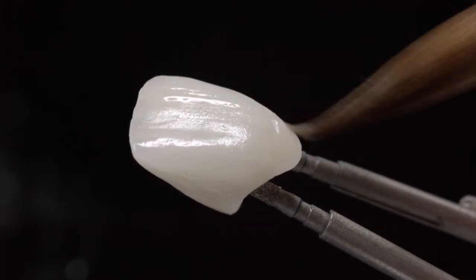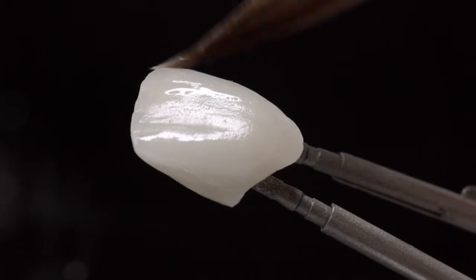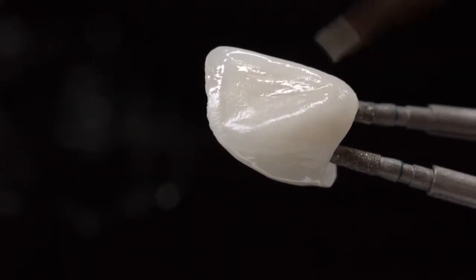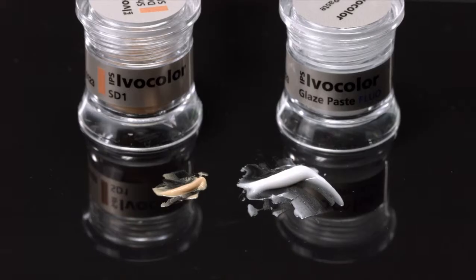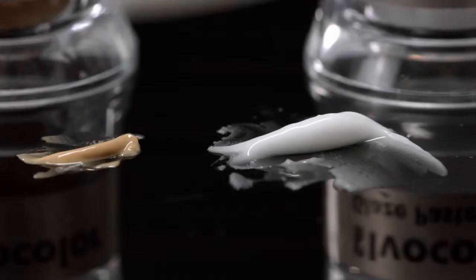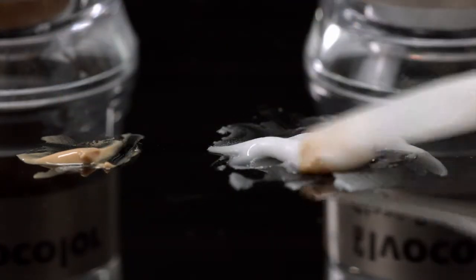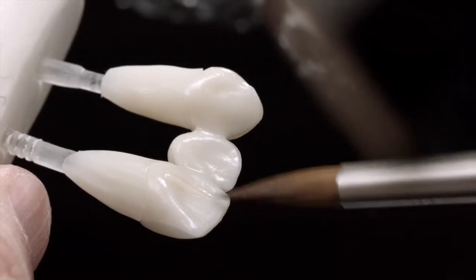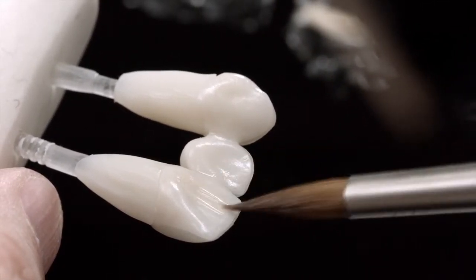Apply the glaze in a thin layer on the veneer. Carry out the glaze bake according to the respective ceramic material's firing recommendations. The associated firing tables can be found in the IPS Ivocolor instructions for use. If you need to make a slight shade adjustment in the glaze bake, mix the relevant stain color with the glaze and then apply it to the restoration. Avoid applying the stain in the unfired glaze, as this can lead to rough surfaces on the fired restoration.